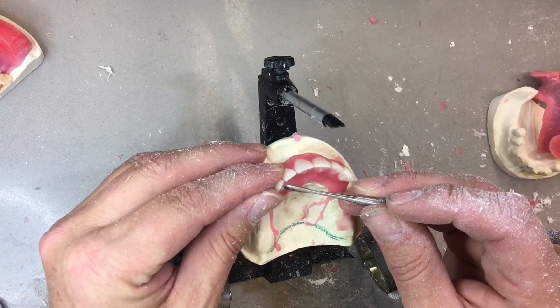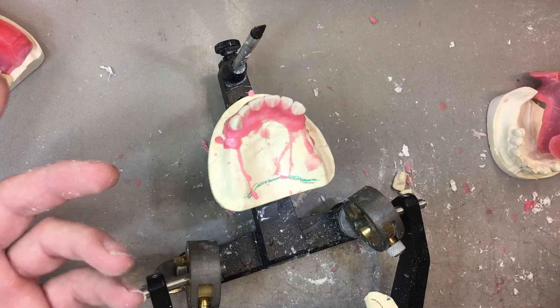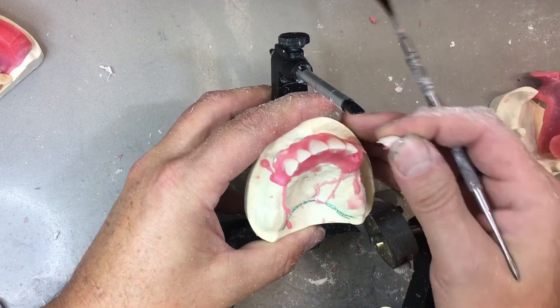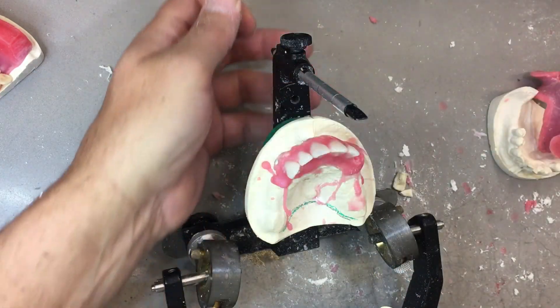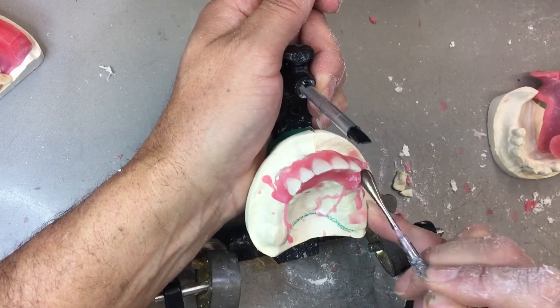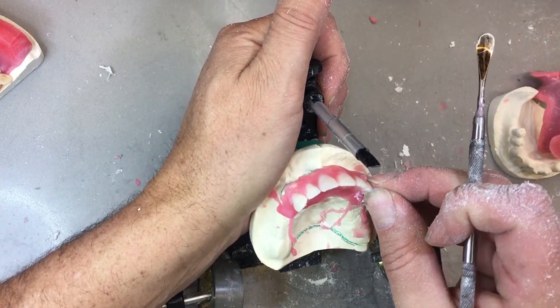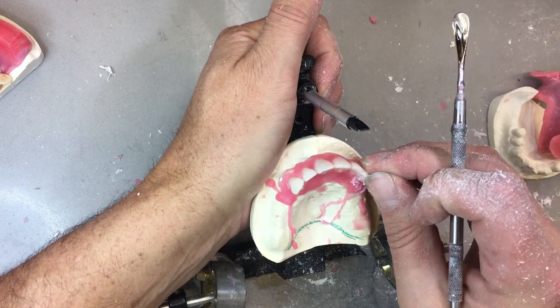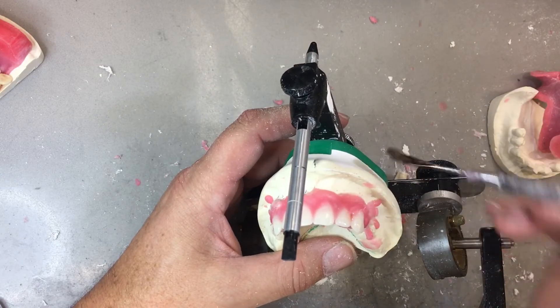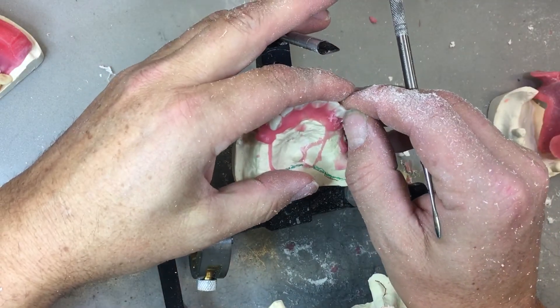As long as I'm in the ballpark to start with, I can move forward. I think that's where us at the novice or beginner stage get locked up, saying, is that okay? You can't be sure until you have a relationship with something else — it's in free space. I need it in relation to the bottom, in relation to the plane of occlusion, in relation to the emergence angle of the other teeth. So every time I'm looking from a different angle, I'm constantly adjusting and changing. You can't be in denial saying the tooth shape wasn't right, the wax got hard, the snow was falling heavy — whatever. We have to overcome, persevere, and proceed.